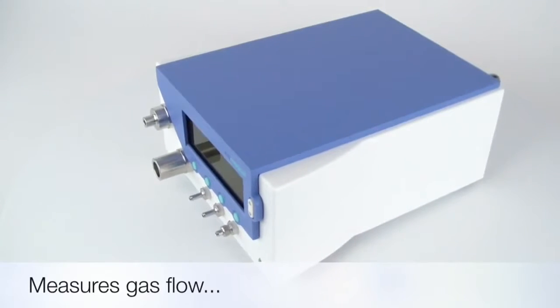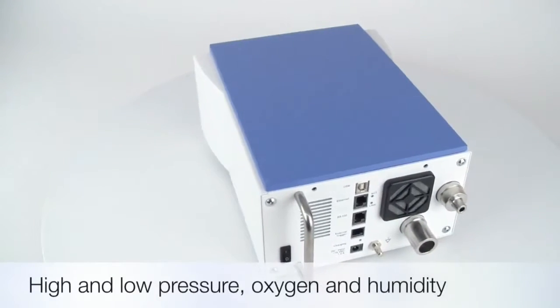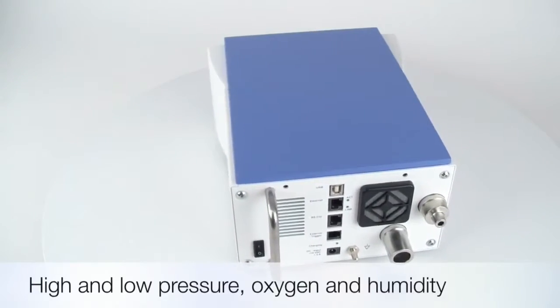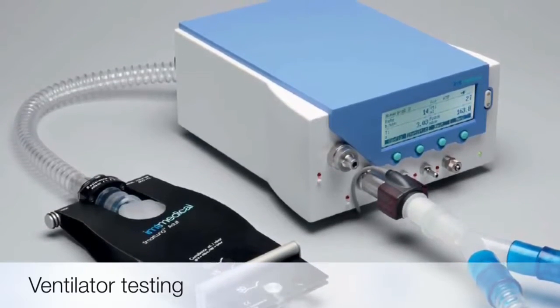And safety professionals in hospitals. With the flow analyzer, testing of any kind of medical ventilator becomes easy, reliable, and very efficient.